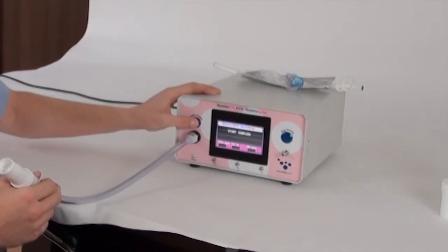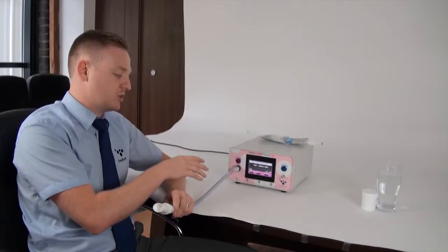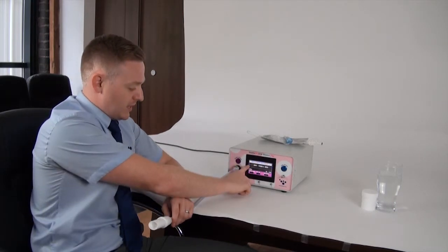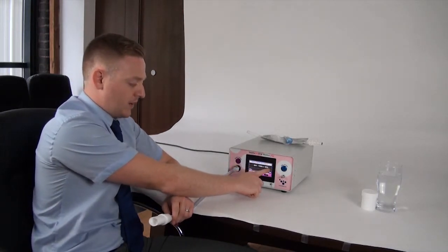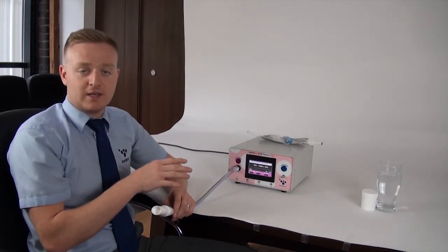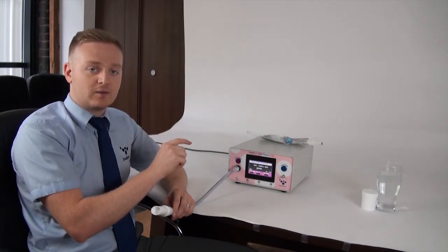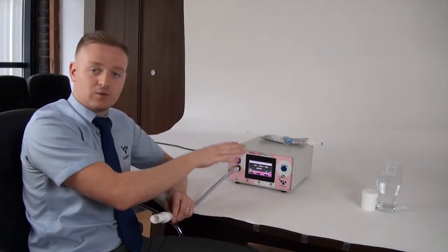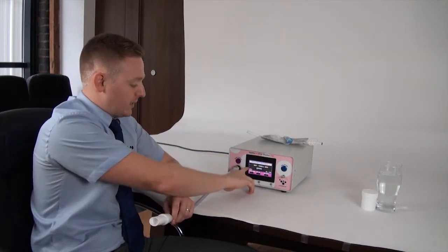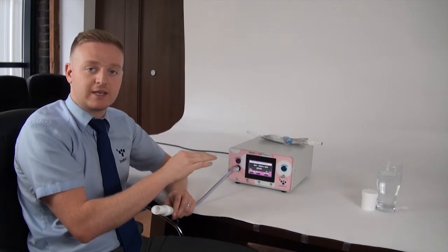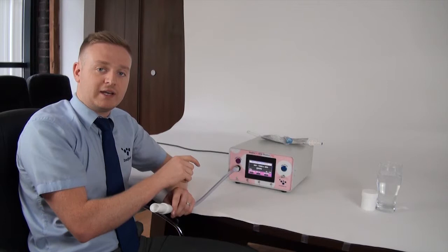Now to start the sampling test, you just need to press the breath sample button on this side here. Press that and the monitor will then purge and zero. Now the new features you'll see on the breath sampling mode are on the screen. You'll see a red bar come up along here and this is to denote two things. Now the first thing it notes is to where to keep the flow. And the flow is shown on the screen by a blue line. You'll see all this when I'm doing the test. The blue line needs to be kept within the bar, and as soon as it gets into the bar it will then show a flashing blue light. So you just need to keep that as steady as possible within the bar.